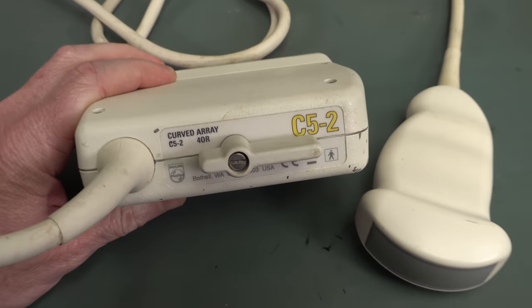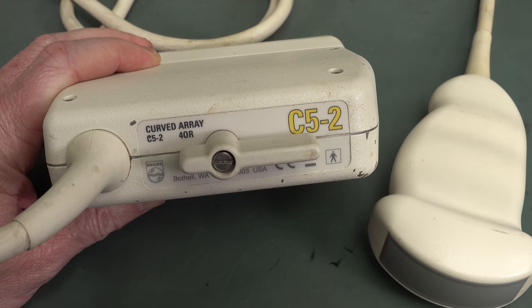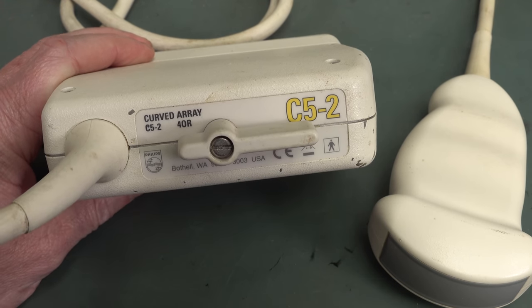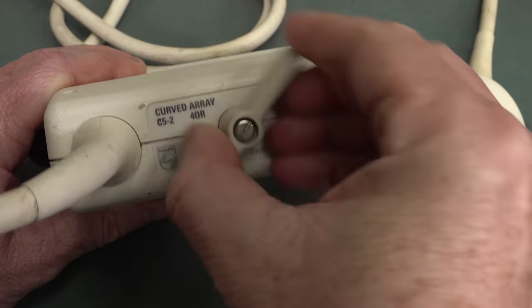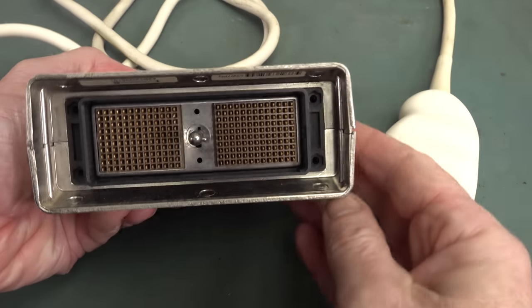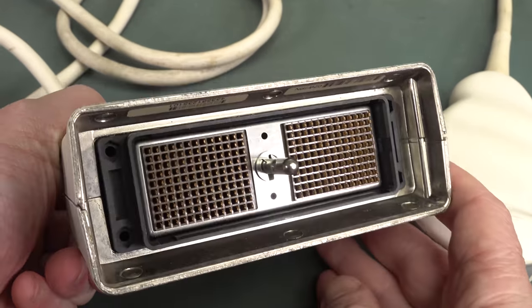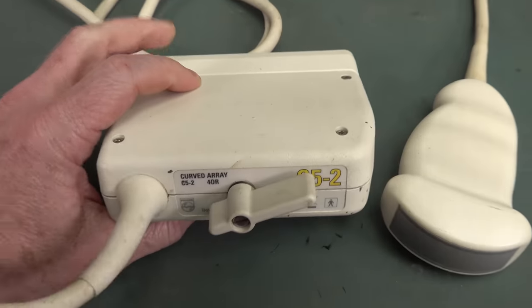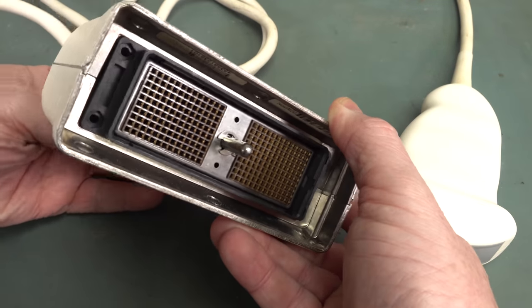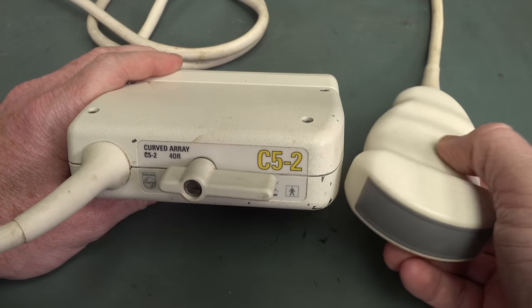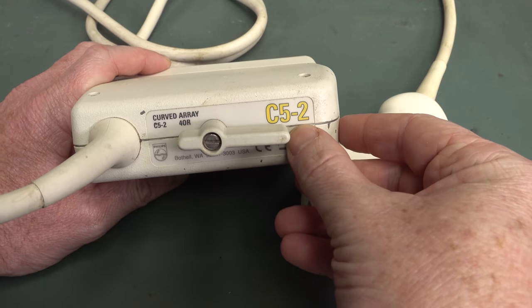Now this is a curved array. The ultrasound machine we looked at had three different connectors so you could permanently connect up to three different ultrasound probes and switch them in software depending on what you needed. And by the way, the actual connectors are absolutely gorgeous. Look at that. It's just a thing of beauty. Really robust industrial-type connector that just latches in place.